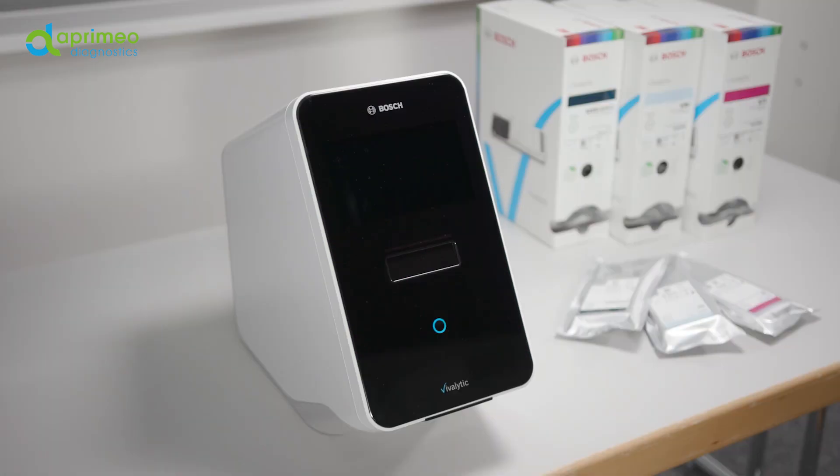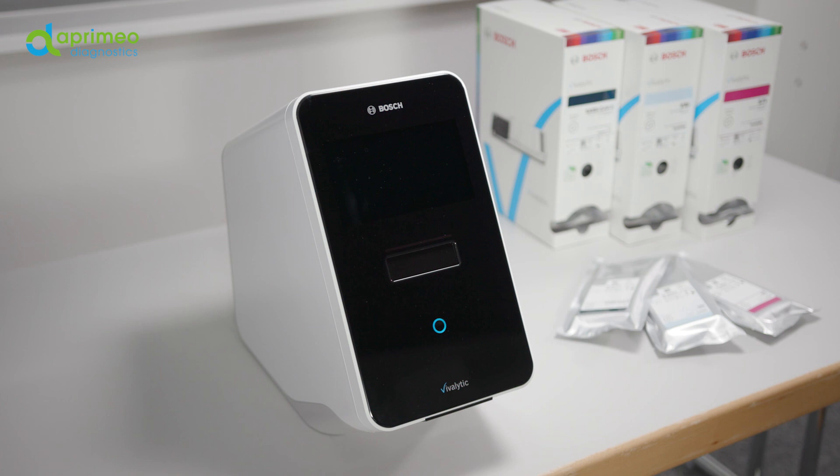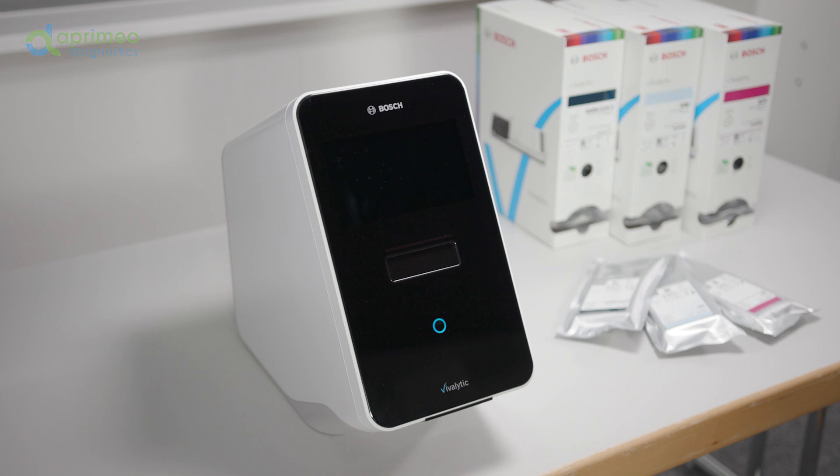You are now familiar with the main features of the analyzer and you've created a user account. Now you're ready to conduct a test from within the application menu.